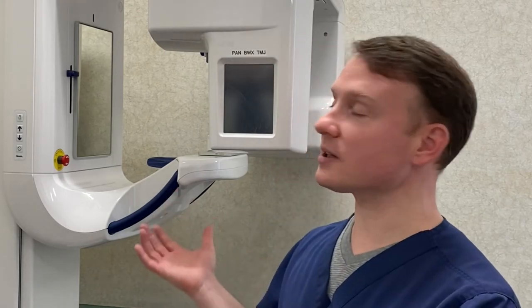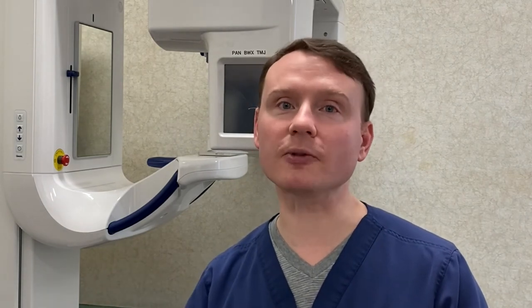There can even be a lot more than that if there's a real anomaly. There are different anomalies and even extra teeth aside from wisdom teeth — we can have missing teeth, we can have extra teeth, and x-rays like the panoramic can help detect that. They can also help detect tumors, and should you have a fracture of the jaw, it can be used to detect that potentially too.